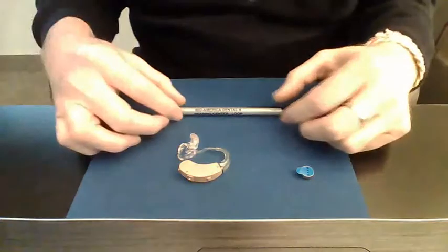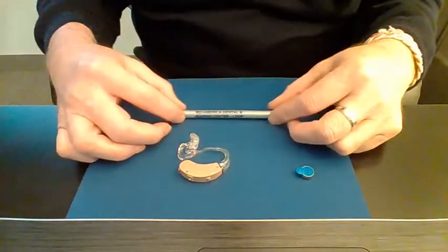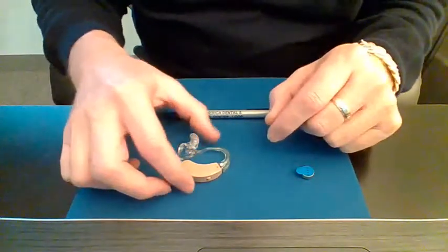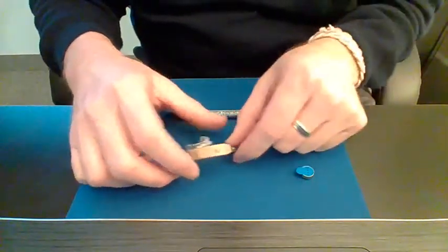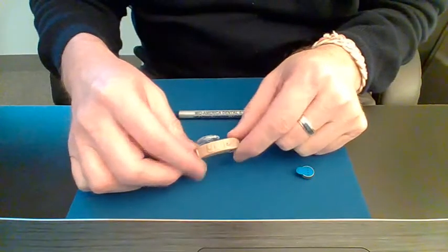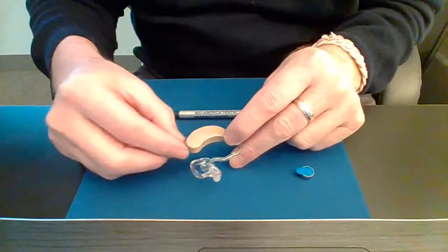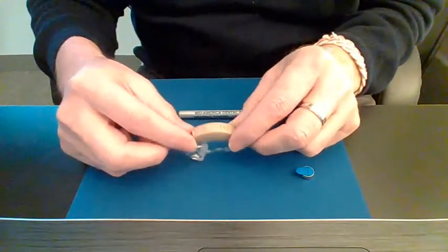Hi, this is Justin again with MidAmerica Hearing Center in Mount Vernon, Missouri. We're going to take a minute to talk about battery insertion and removal on a high-powered behind-the-ear hearing instrument.